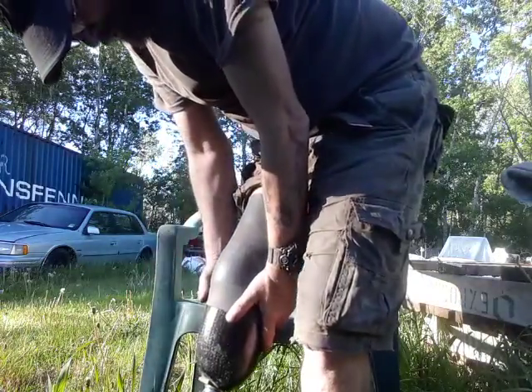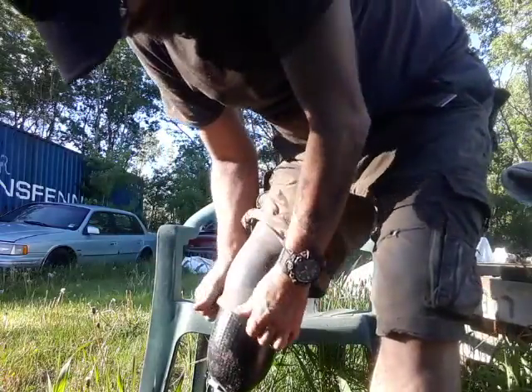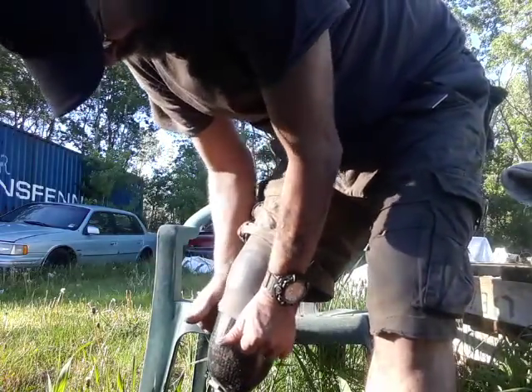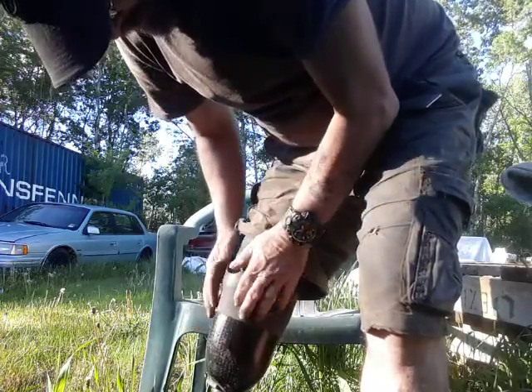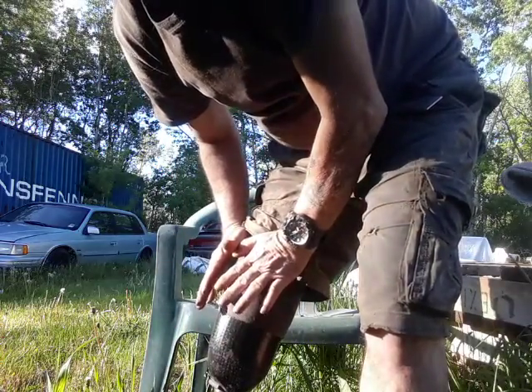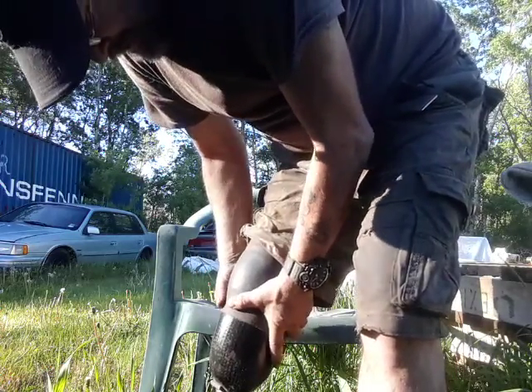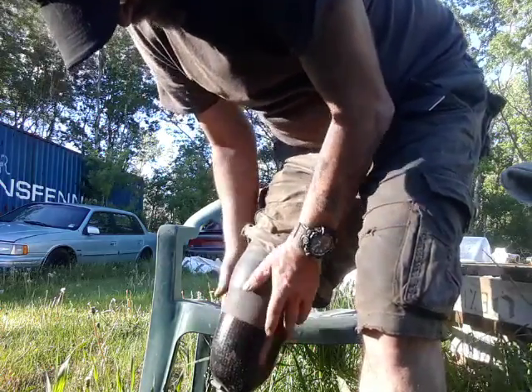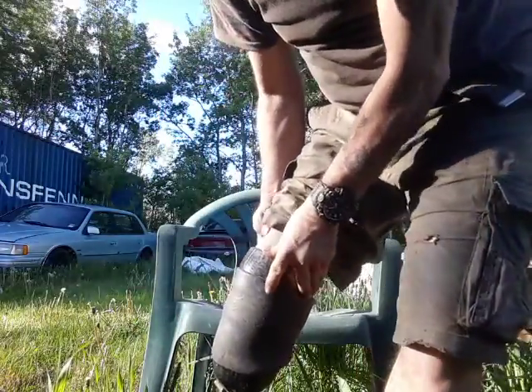With these sleeves, here's another tip: if you find they're too loose and they've started to get a little worn down and the elasticity is gone, use electrical tape — not duct tape, electrical tape. Give it three or four good wraps, nice and snug. That's all you need to pull your leg down. That's all you gotta do.